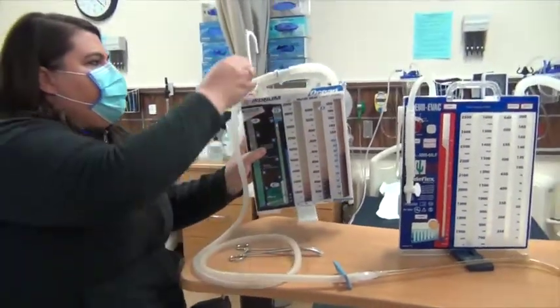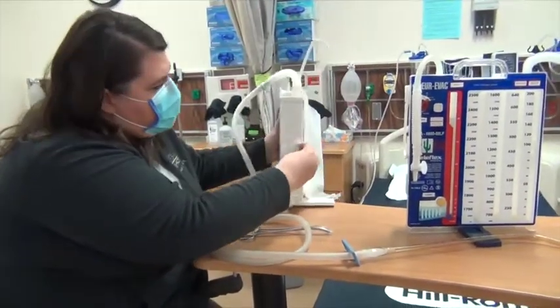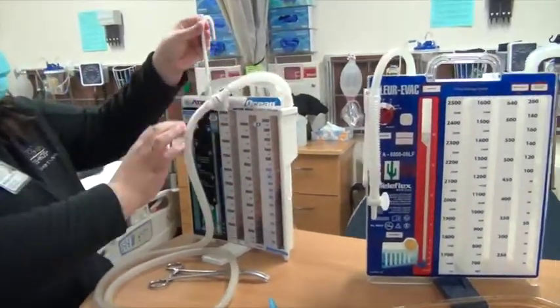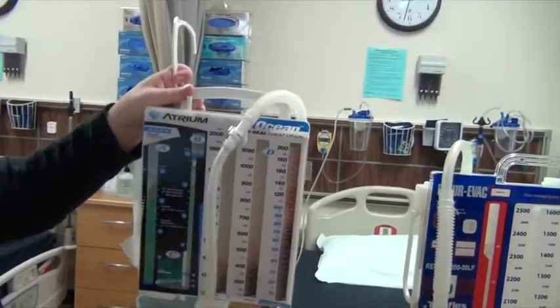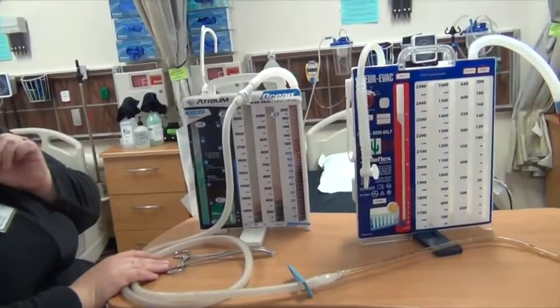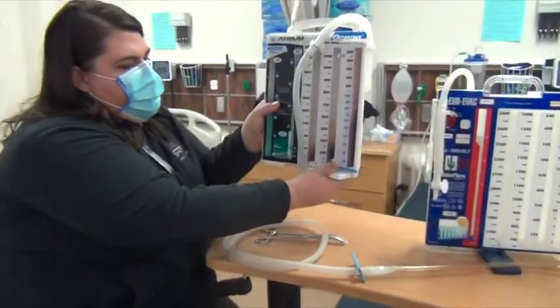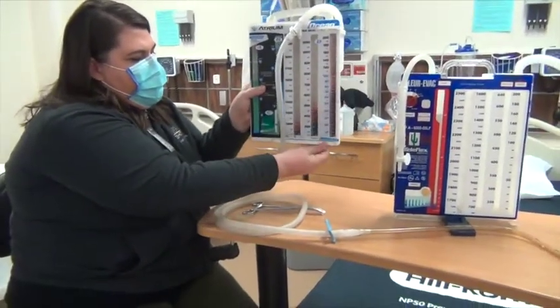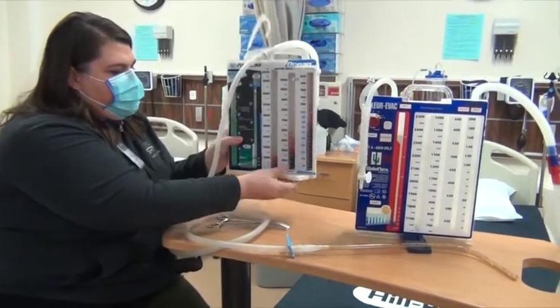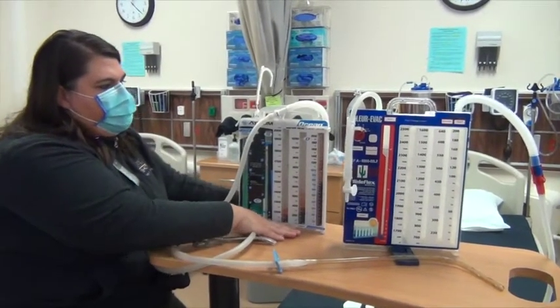You'll also notice there's a handle on these. There's little clips here. This one only has one for some reason. It broke off. Normally there's 2 little clips, and you can hang this on like a walker or something if they were going for a walk. If they needed suction, you could get portable suction. And then there's also a stand at the bottom that this collapses and goes up if you needed to use that as well. You just always want to make sure this support's in place when you put it to the floor, and sometimes it'll even get taped to the floor.